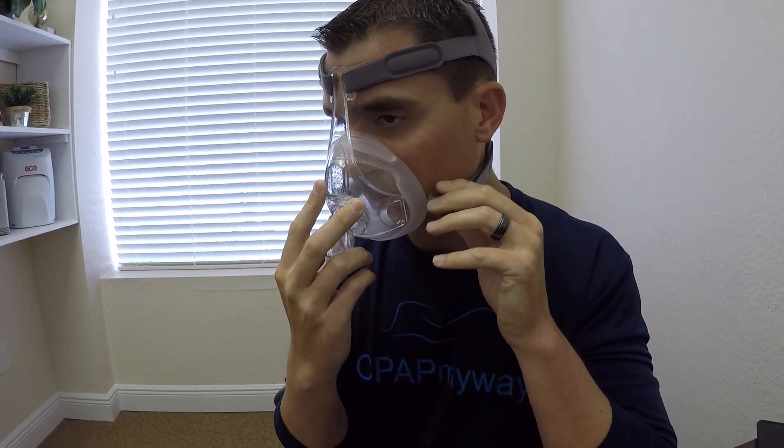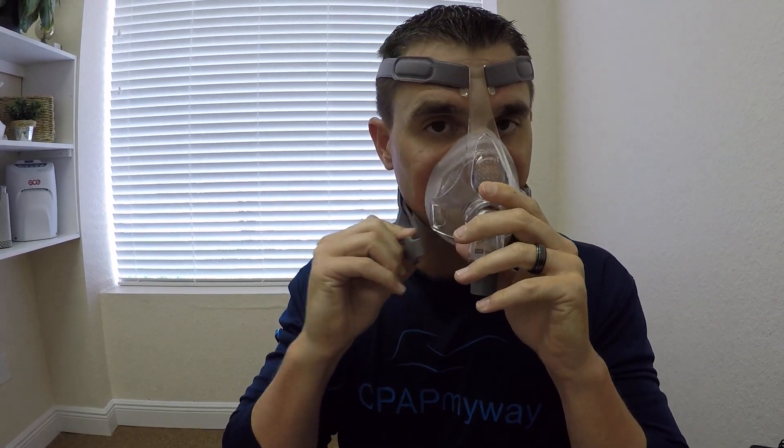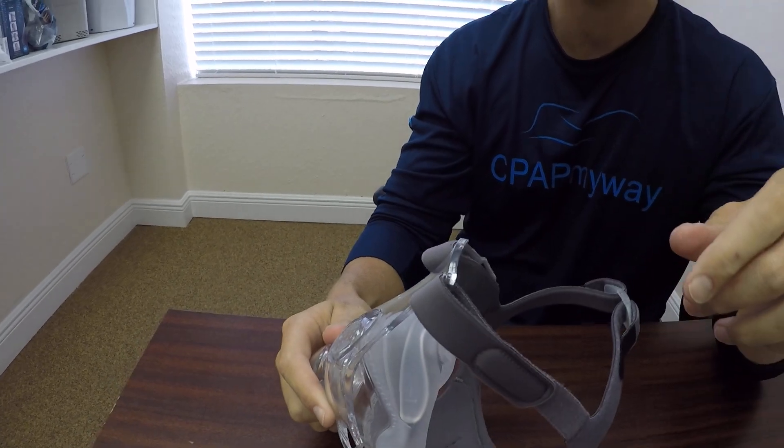Pull the headgear separate, fit the mask over your face, and then one at a time, pull these around and snap them out. The same to take it off there - take both straps loose and keep it from stretching out your headgear as much.